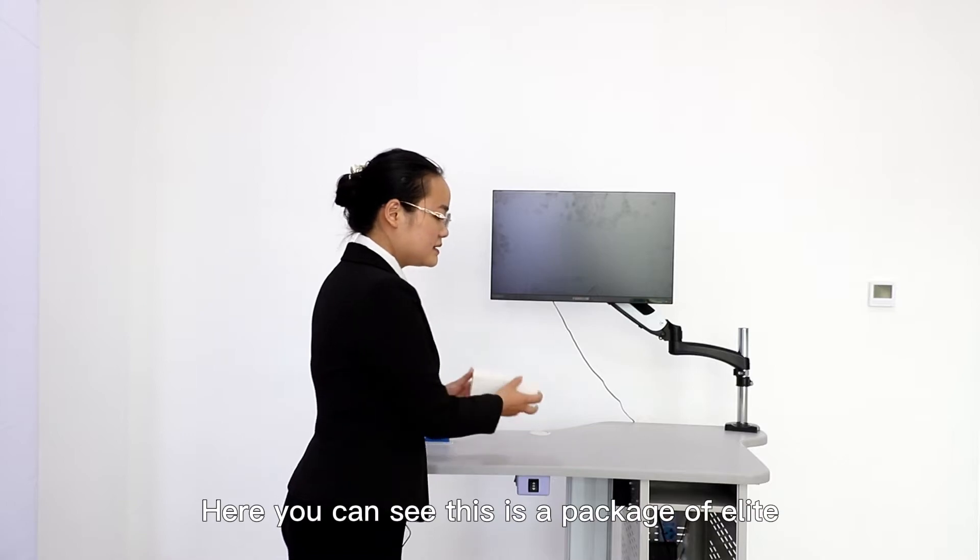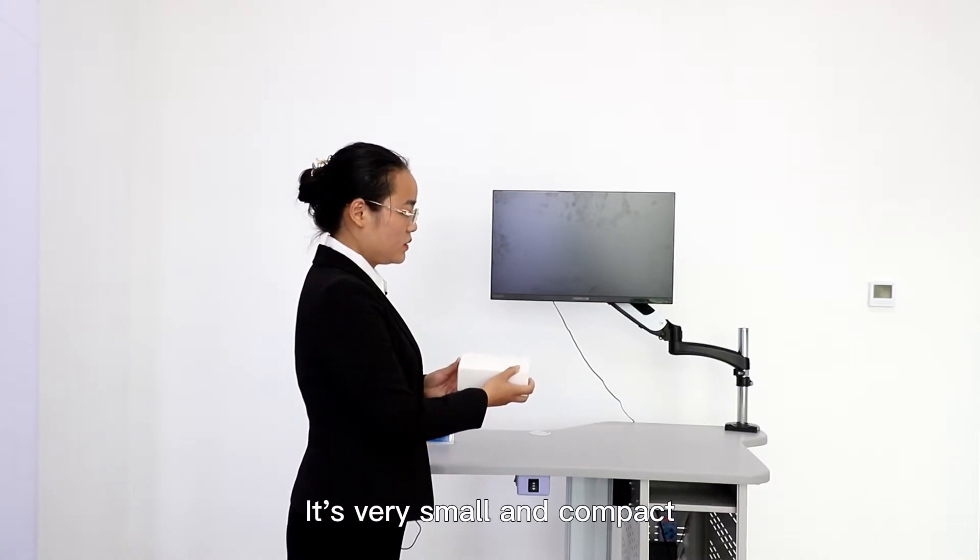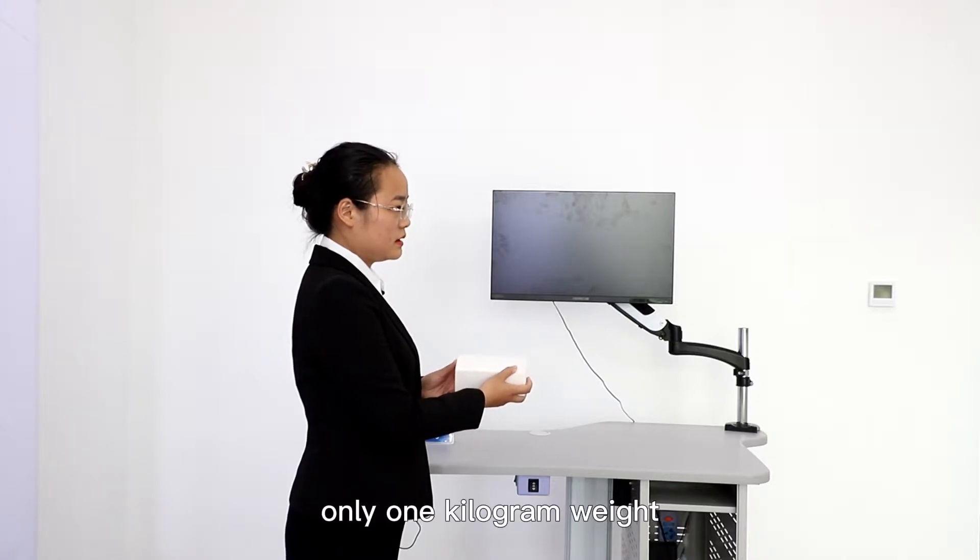Here you can see this is a package of Elite. It's very small and compact, only one kilogram weight.